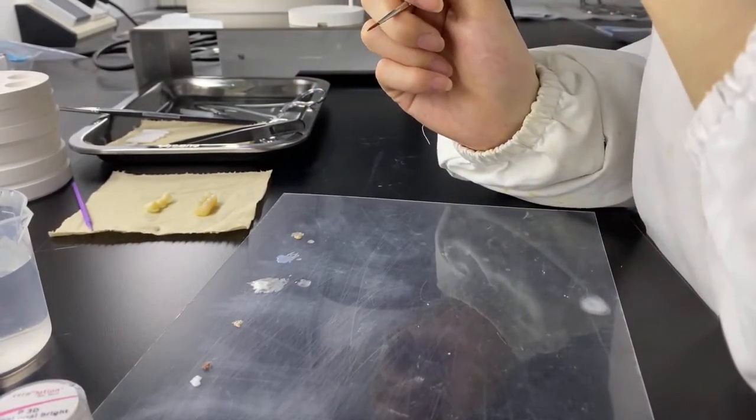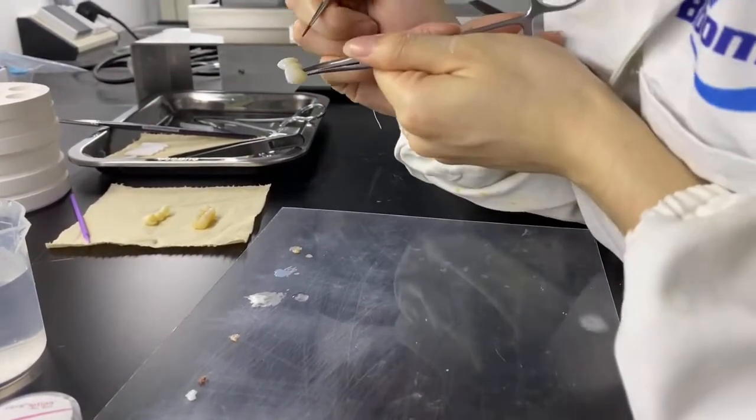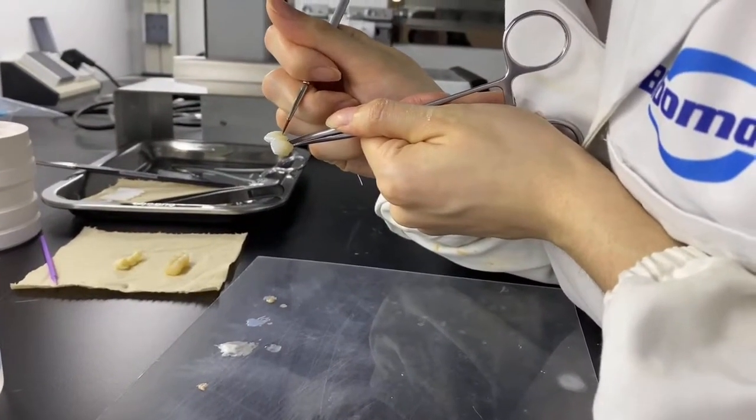3D Pro multi-layer zirconia with improved translucency has been developed to closely match colors of human teeth.